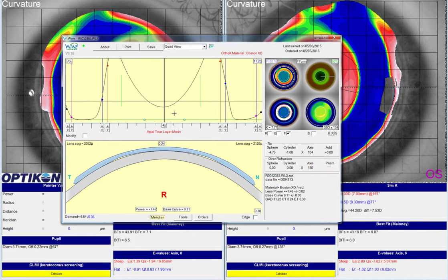There's a funny kink in there right now, so let's give it one more click to smooth out the curve. That will also give us a more accurate measurement in terms of differential for the sag.